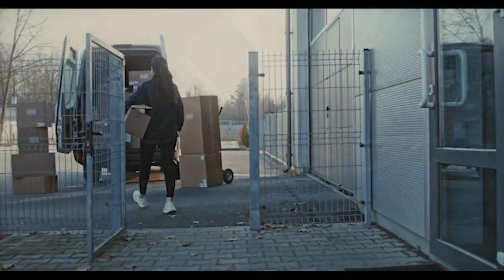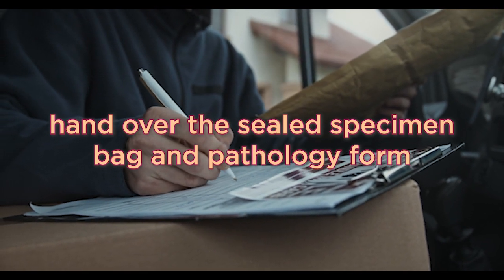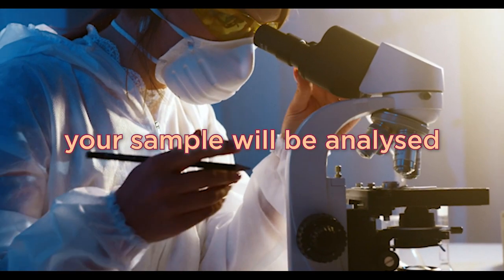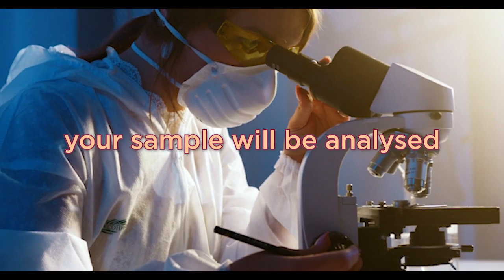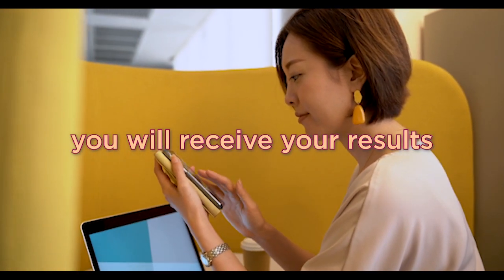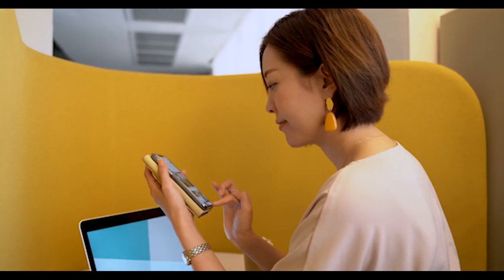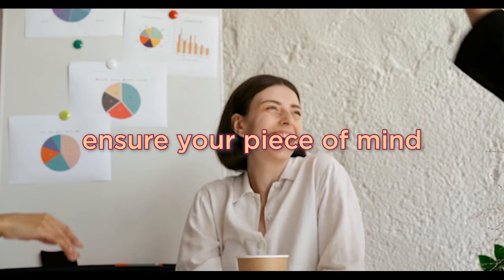When our courier arrives to collect your sample, please hand over the sealed specimen bag along with the completed pathology form. Your sample will be transported to our lab where it will be analyzed. You will receive the results of your HPV screening via the contact information you provided on the pathology form. We aim to provide timely and accurate results to ensure your peace of mind.